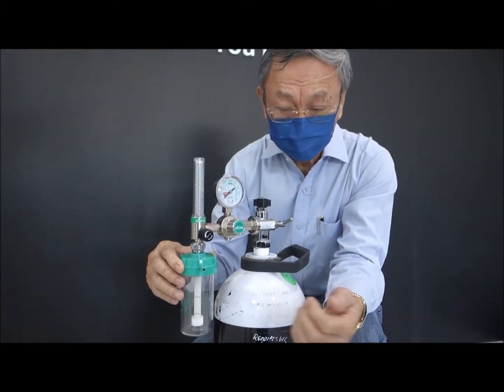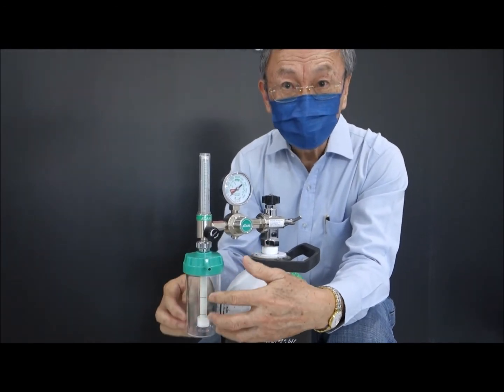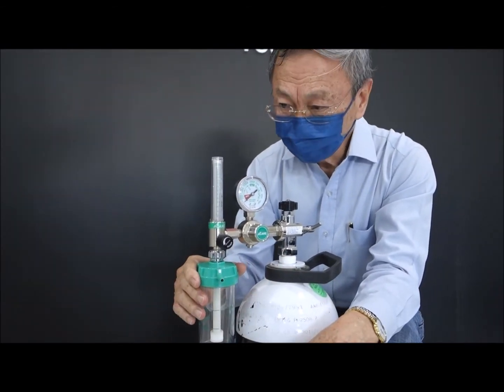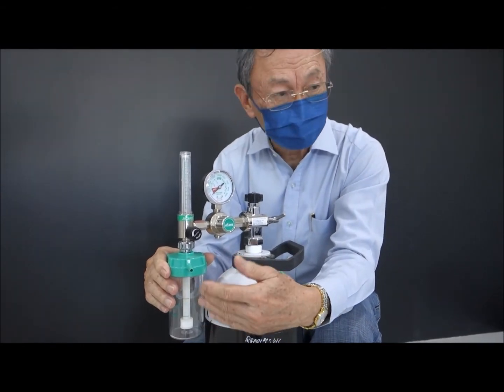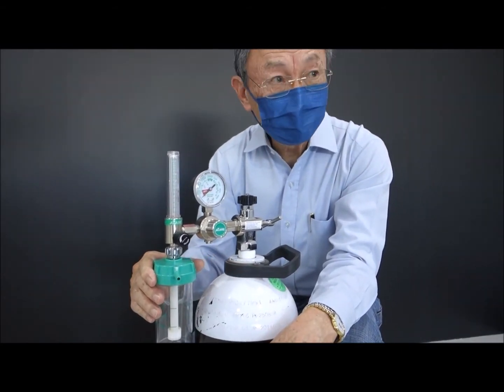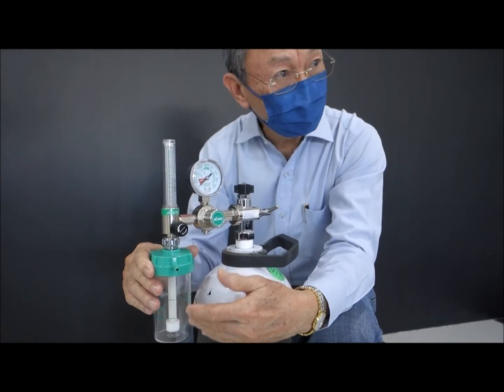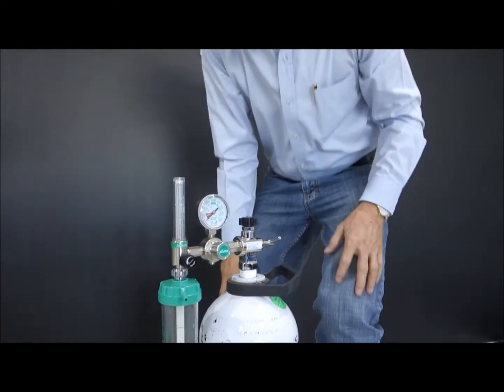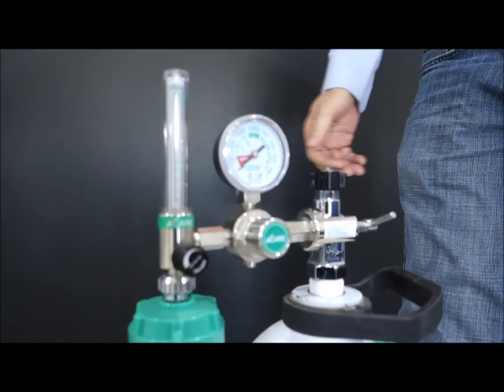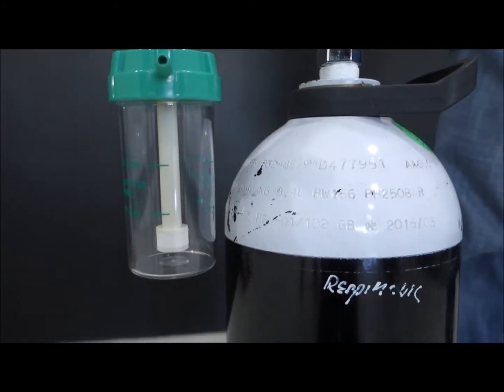To prevent growth of bacteria inside the system. So try to change the water everyday. Need to prevent fungus growth in the humidifier, change the water everyday. Ideally, use distilled water, even if not, the boiled water is good enough.